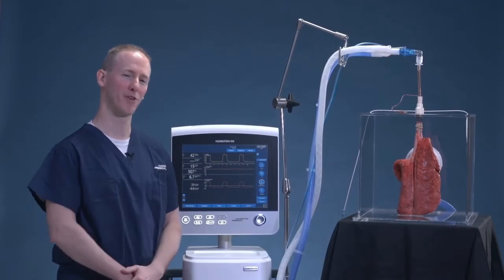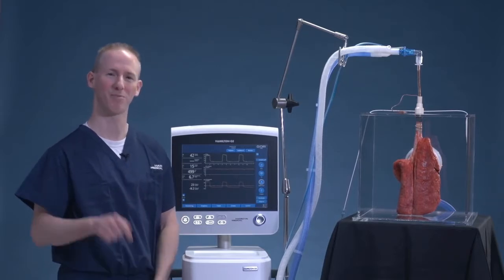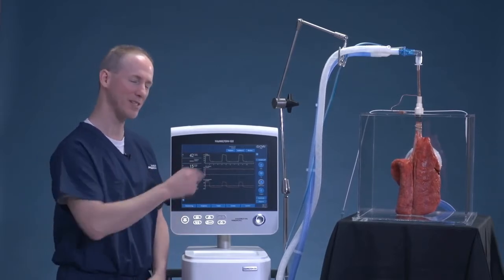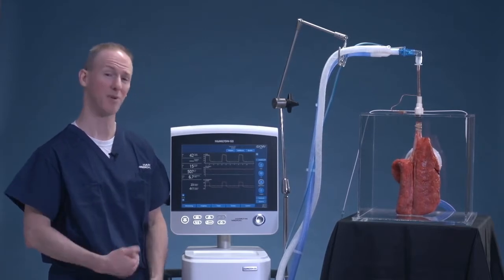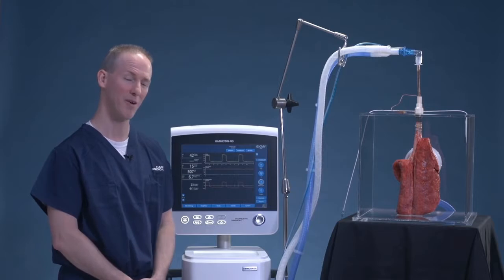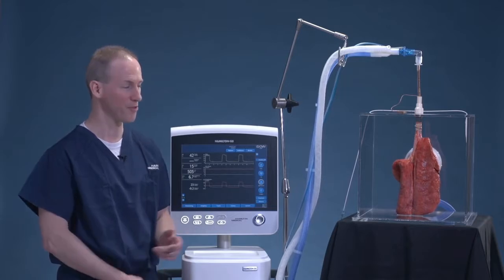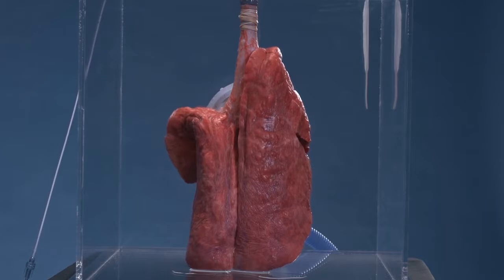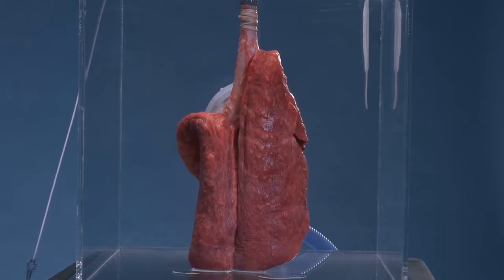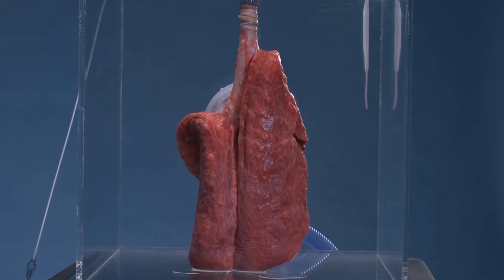To demonstrate for you what happens when the pressure outside the lungs exceeds the pressure that we've applied with PEEP, we've increased the pressure to this box to 16 centimeters of water pressure. Because we have an esophageal catheter in place, we can tell you exactly what that pressure is and reconfirm the settings that we've dialed in. Notice, if you will, before we do that, just how many of those alveoli are collapsing from breath to breath. We know the cyclic swing to alveolar collapse exacerbates lung injury.